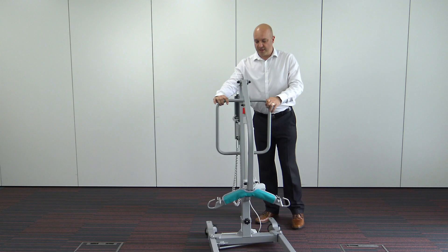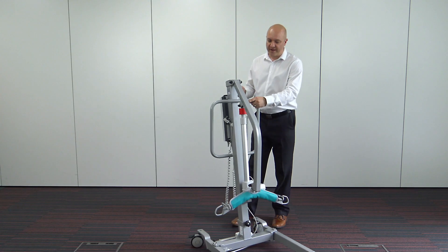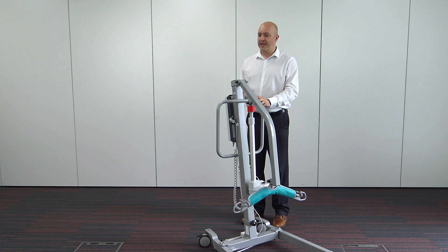For an economy hoist, we also have electric legs. So instead of the manual operating legs that you'd normally find with a hoist in this price bracket, we actually have electric operating legs on this one, and obviously it's got an electric up and down.